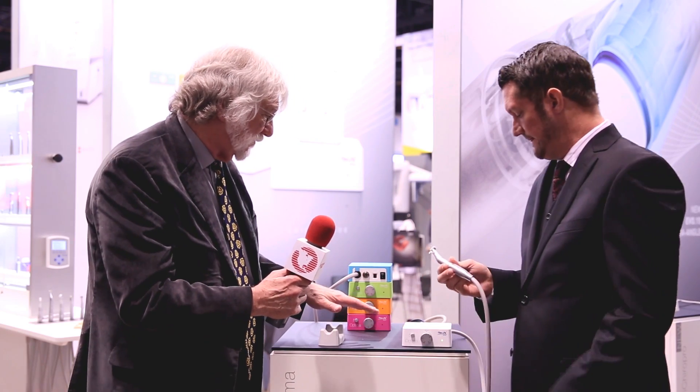Let's go back to the controller. What's kind of neat is I'm looking at multiple colors here, so I can have a color-coordinated office. We want to give the user a selection — it's very simple and also customizable. It comes with a bracket and you can install it under the dental unit or on either side. We really give the choice to the end user. So I've got a cool-looking thing and a physically cool-running thing here.